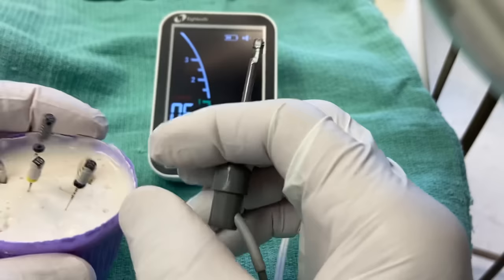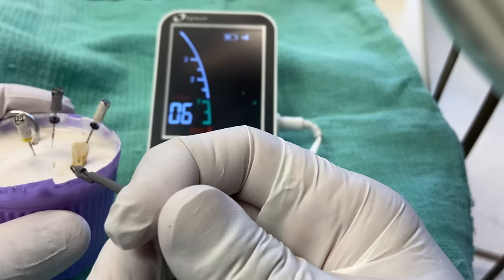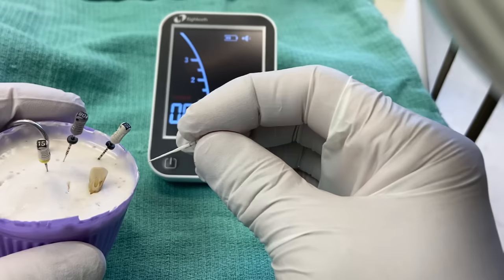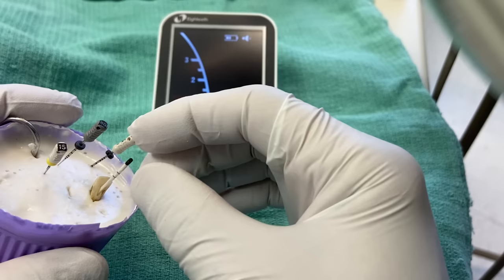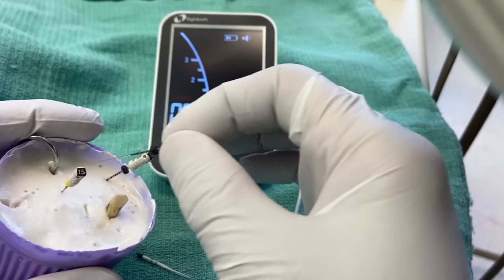The next thing is when your reading is unstable — just kind of fluctuating all over the place — there are two or three basic problems. The first and simplest troubleshooting step is you might have too much liquid in your canal: too much hypochlorite, EDTA, or whatever. So just dry some of that out. It doesn't have to be bone dry, but a drier canal seems to help. I'm sure there's a scientific reason for it.